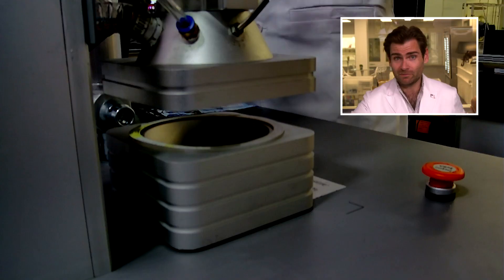Hey everyone, welcome back to the place where we are testing every single mask in the world, in the real world. In this case, we're talking about CVS — not some stuff we bought online. No, I walked my sorry self into a CVS and I saw this sitting behind the counter, face mask, and that called to me. Let's get in the clamper and see what happens.